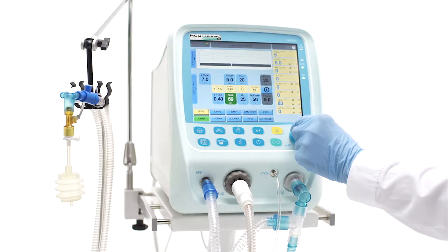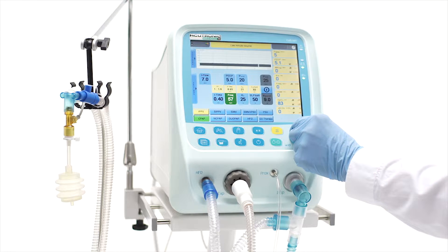Frequency. This is set to achieve a minimum minute ventilation according to clinical guidelines.